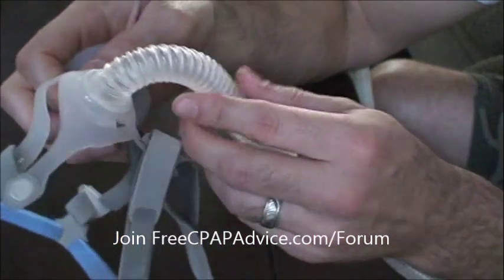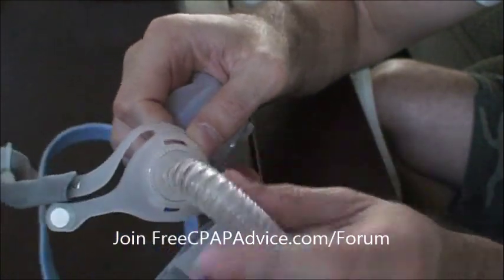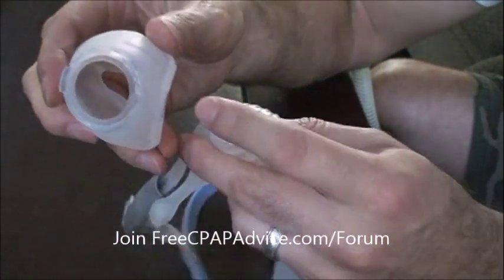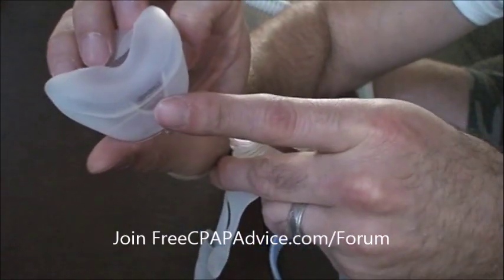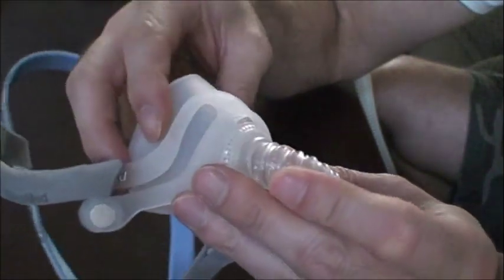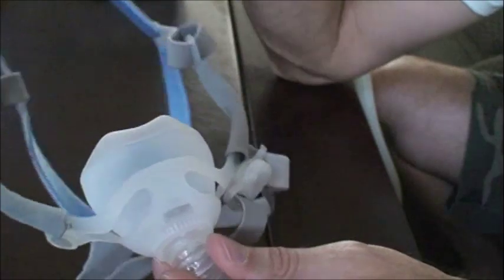When you put the cushion back on, you'll see that on the bottom is a narrow tab and on the top is a much wider tab. Those correspond with the cushion — thin tab, thicker tab. You can see on the bottom it tells you the size; this is a standard. So you want your standard cushion or whatever size you need, pop it back in and everyone's happy.